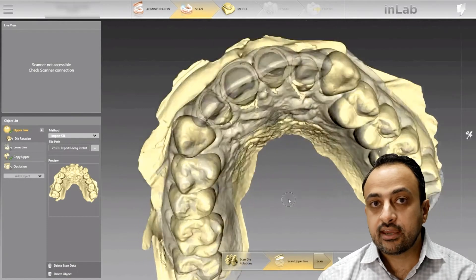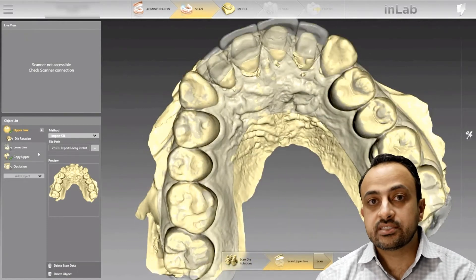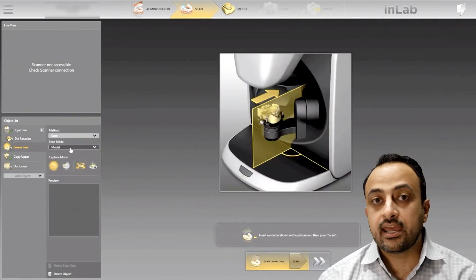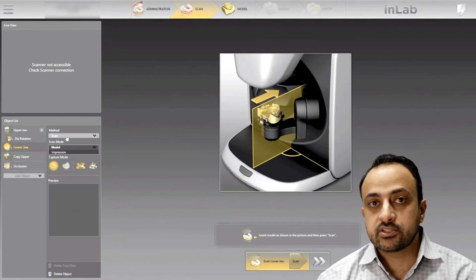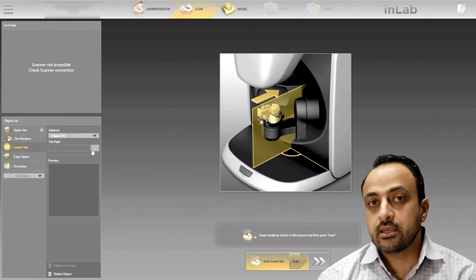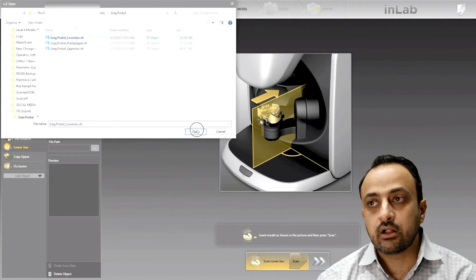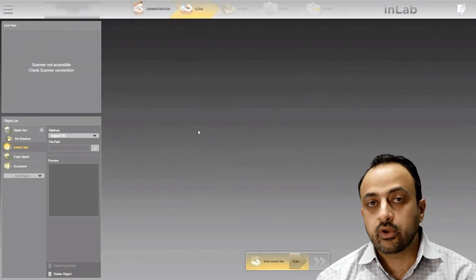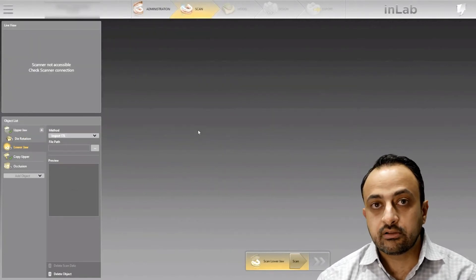Now the challenge I have is I need to get this back out to the CEREC software so I can design and manufacture it with my Chairside mills. So what I'm going to do here is import the lower jaw — I exported that STL as well — and it'll import here with the proper bite articulation.